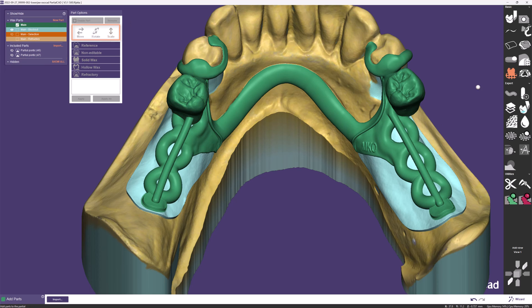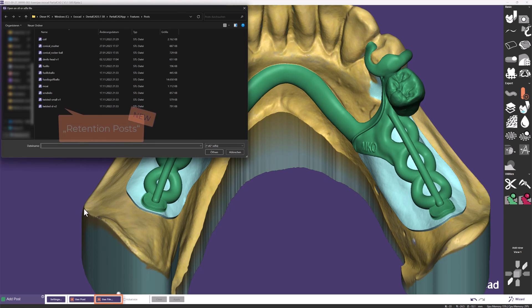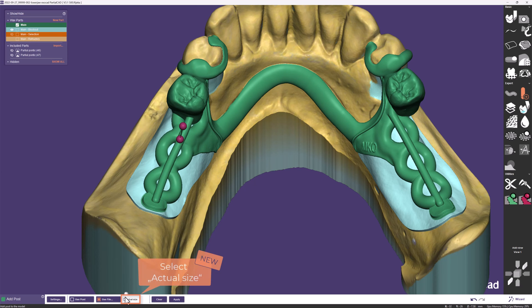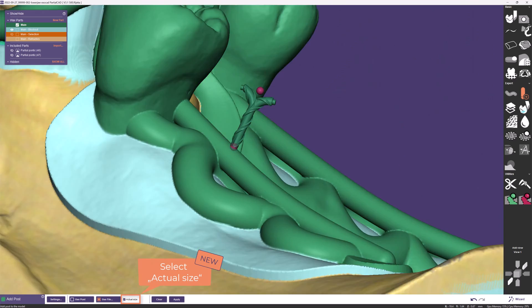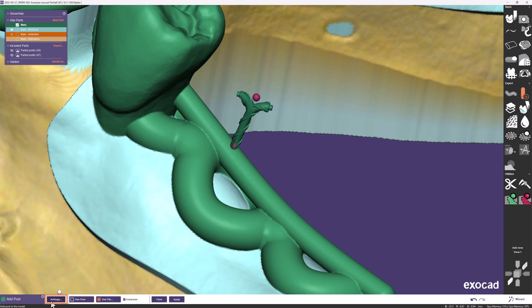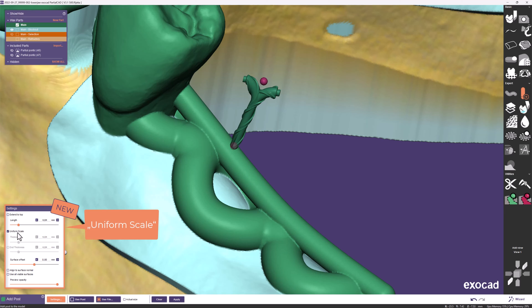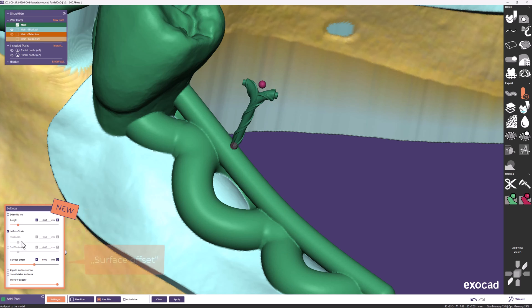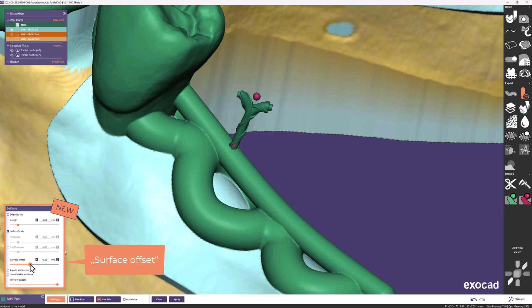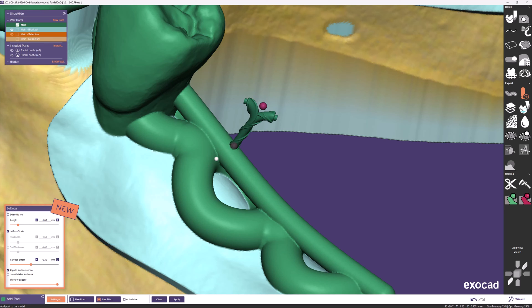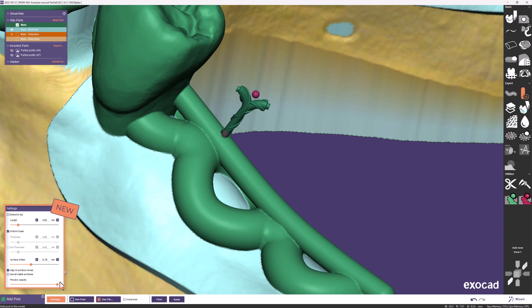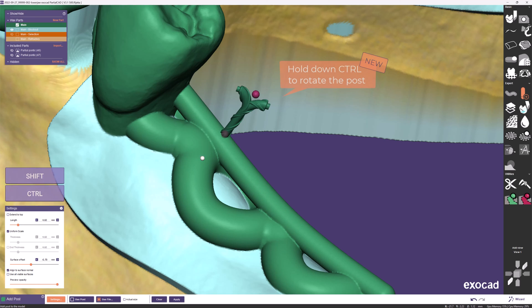The Retention Posts option also received updates. Clicking Use File opens one of the new posts. If the Actual Size checkbox is activated, you get the exact dimensions the file was saved in; alternatively you can edit dimensions in the settings menu, modifying length, thickness, and end thickness individually. Selecting Uniform Scale grays out individual options and the slider scales everything at once. Another slider, Surface Offset, intersects the post with the framework. The Align to Surface option makes the post follow the shape of your framework. The Preview Opacity slider helps you see through the posts, and holding Ctrl lets you manually modify the rotation of the post.